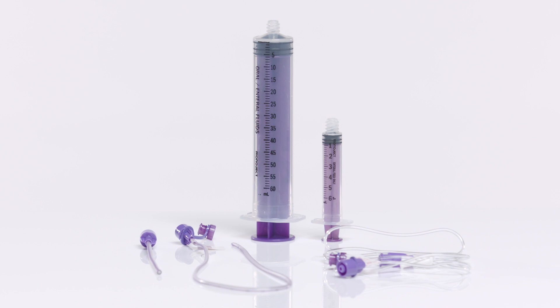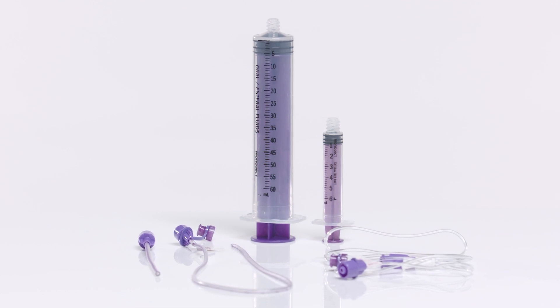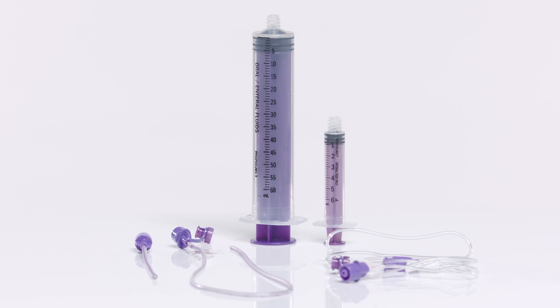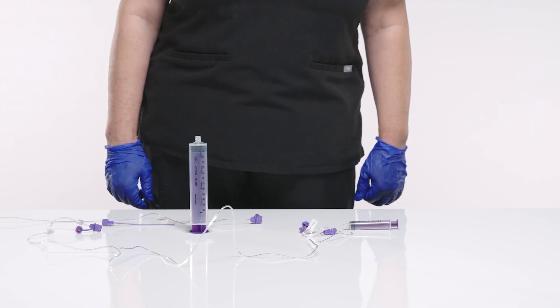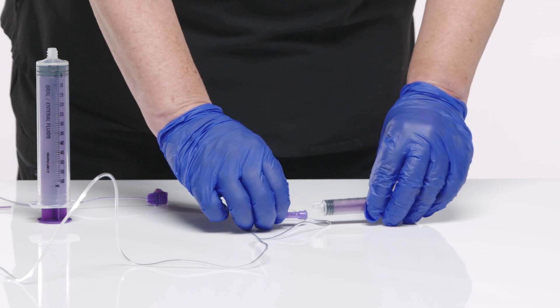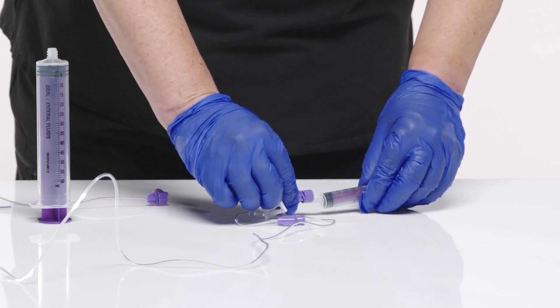Our neonatal and pediatric extension sets with EnFit connections are designed to deliver nutrition while helping to minimize the chance of contamination. Available in four variations, including a bifurcated design giving you the option to irrigate and deliver medicine without having to disconnect the set.